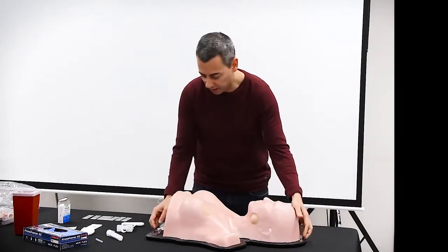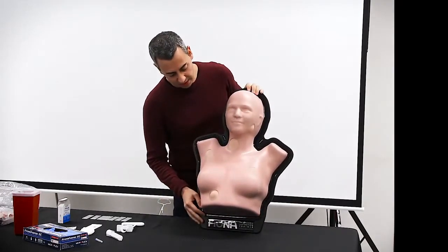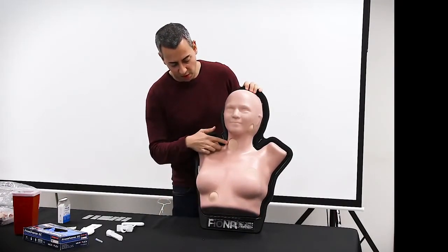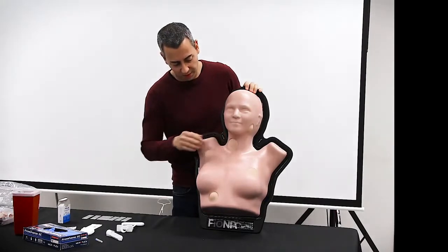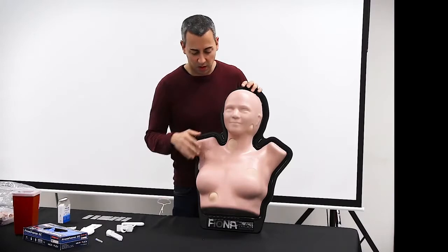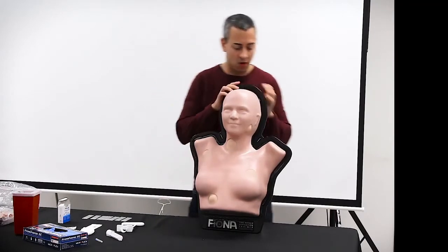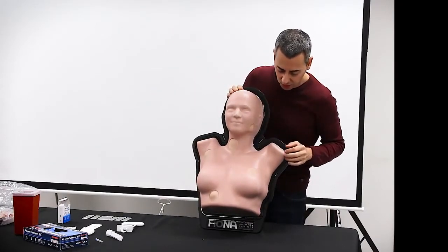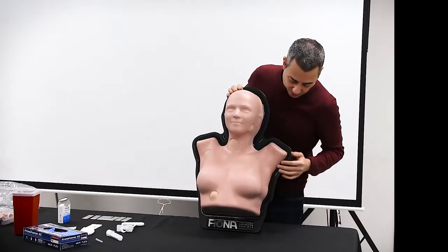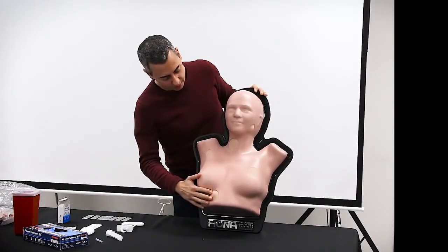So this model has several areas of interest: the thyroid, or even lymph node in the neck, axillary, which can allow you to create clinical scenarios of lymph nodes or even soft tissue tumors, breast for breast cancer lesions, and we have this as well in the parotid gland area.